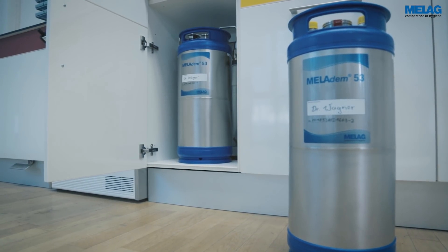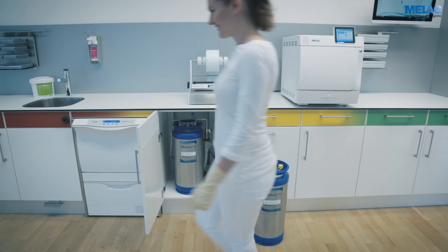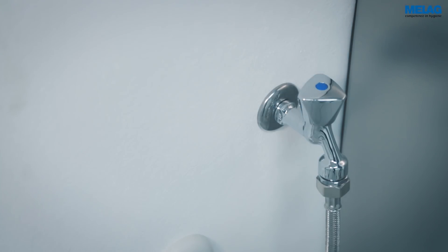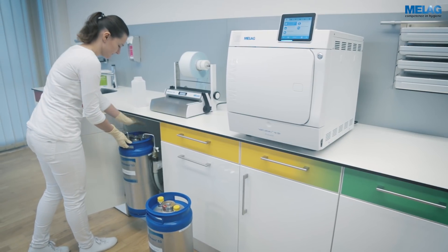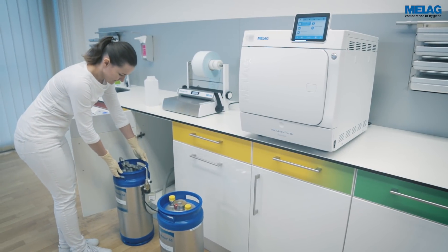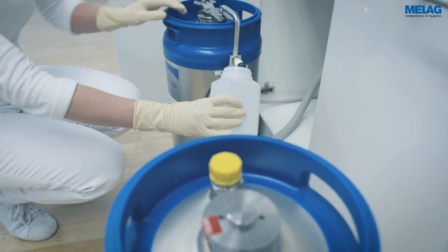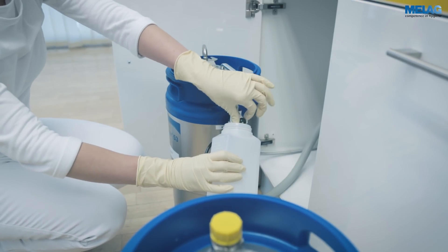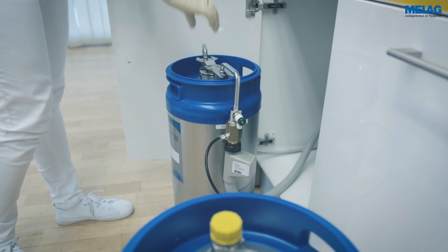Replace the mixed bed resin cartridge as soon as the warning has been displayed. Please turn off the cold water inflow tap to do this. Then place a small container under the bleed valve and open the bleed valve. Close the valve after no more water leaves it.